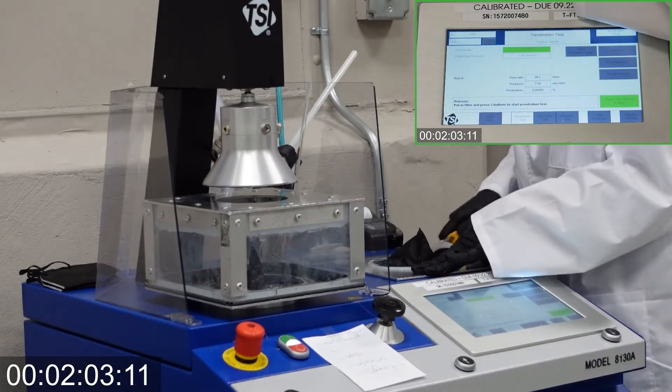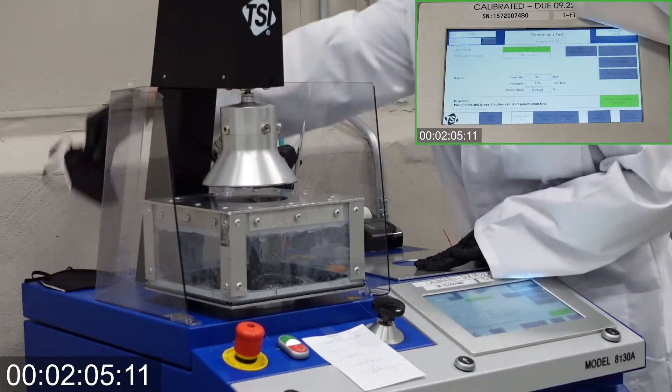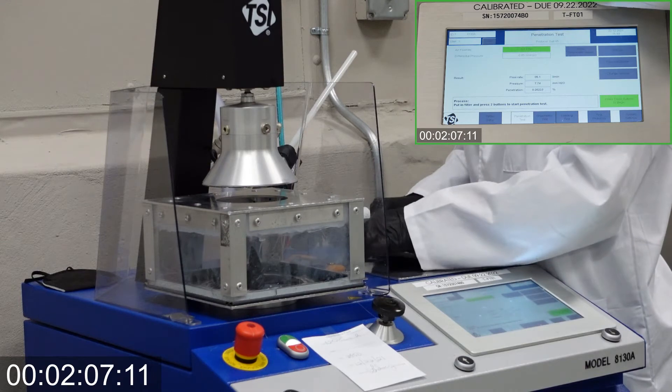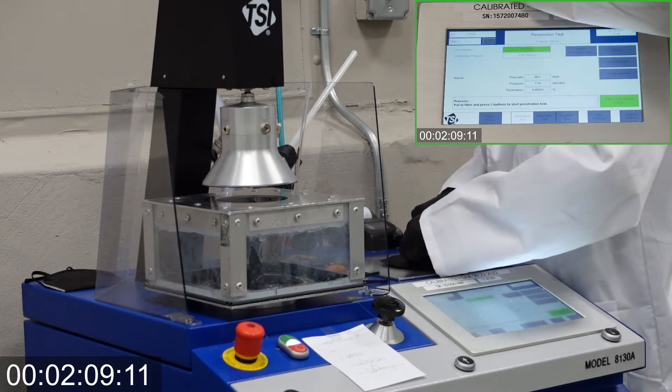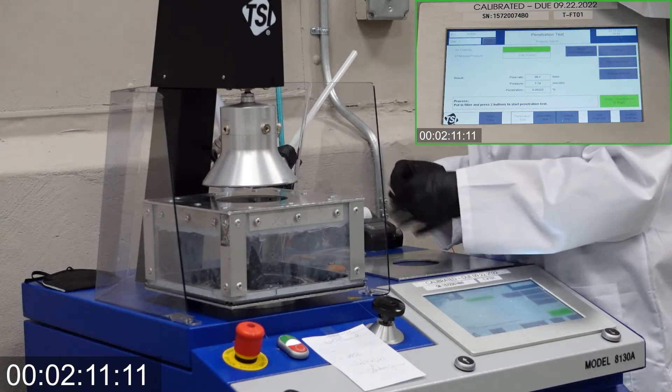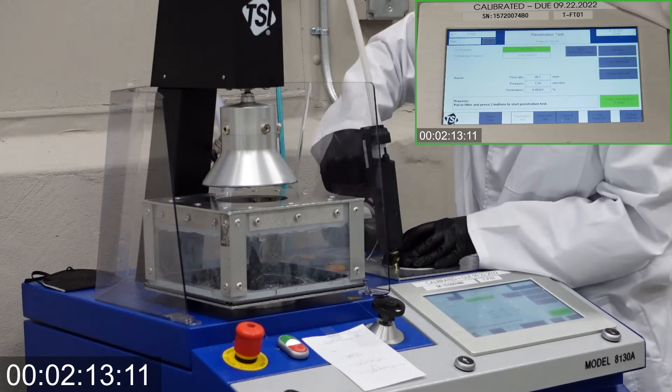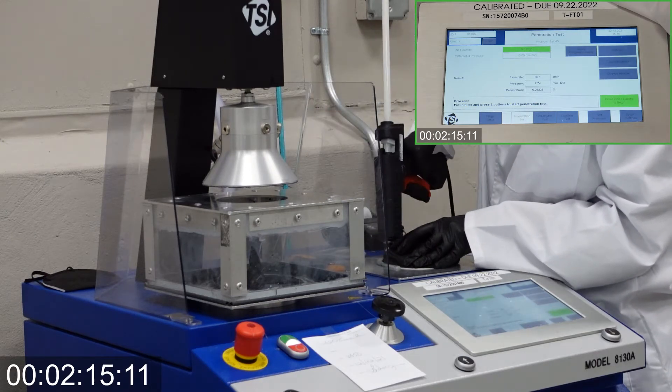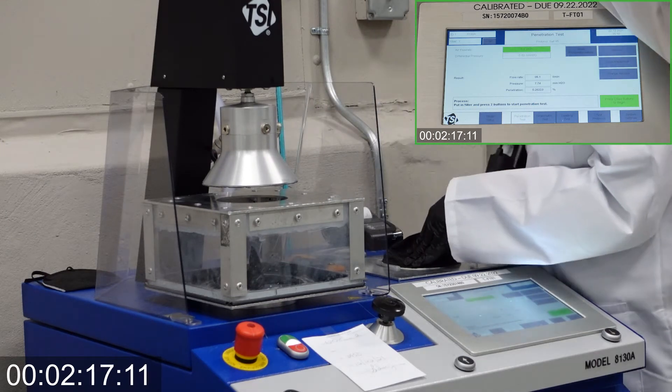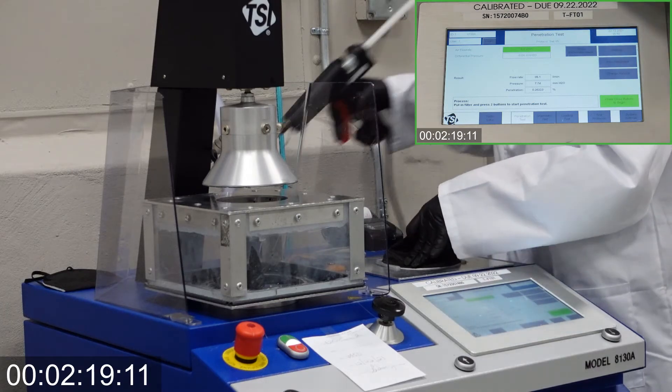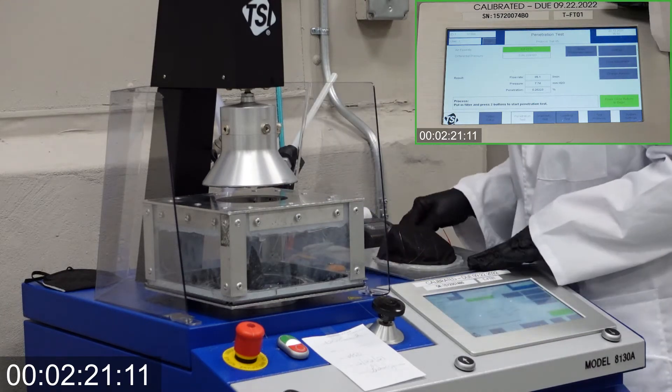If we test one sample that did not pass 95% or higher filtration efficiency, then the whole batch of masks and respirators will fail and be treated with non-conformity procedures. No batch leaves our facility before passing our quality control procedure based on military standard 105E.